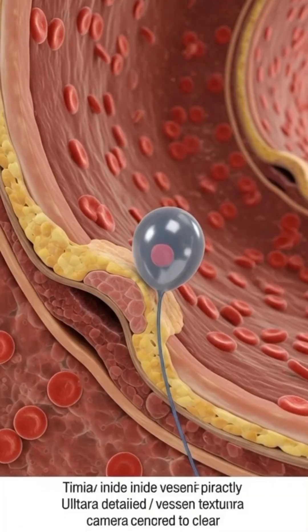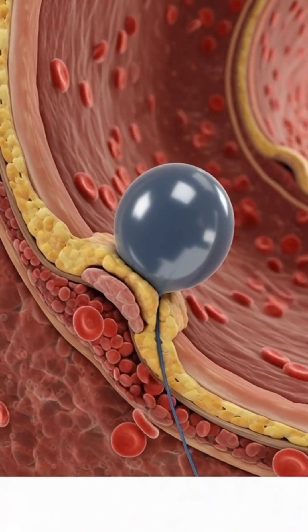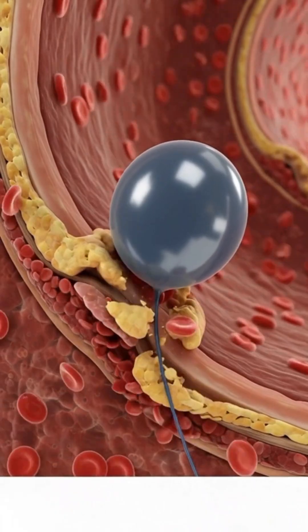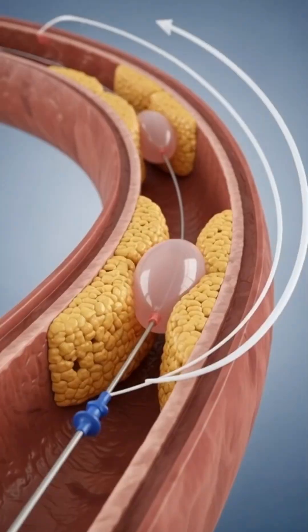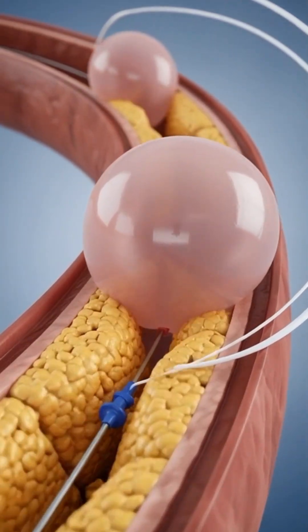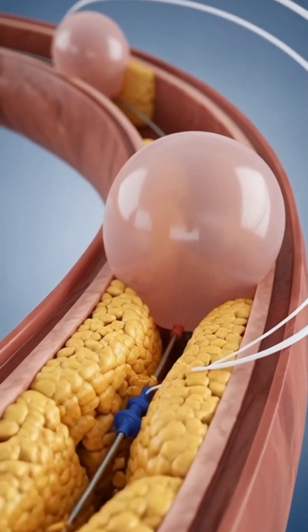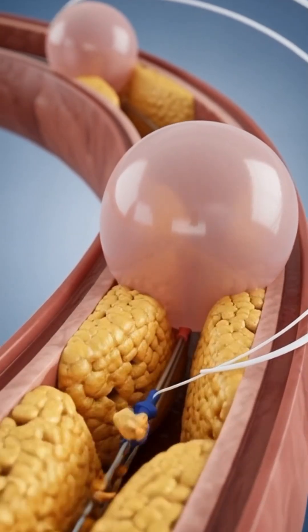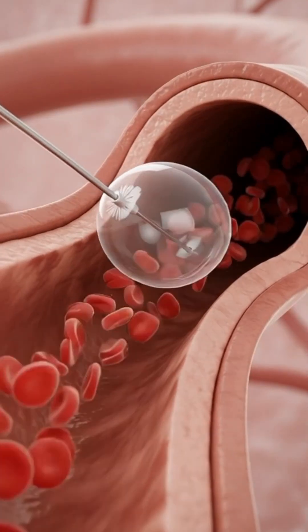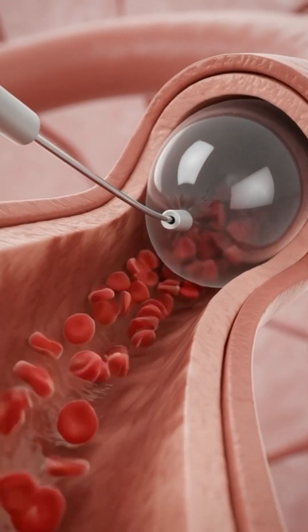A tiny balloon is placed exactly where the artery is blocked. The balloon inflates and pushes the plaque against the artery wall, widening the passage. The balloon is deflated and removed.